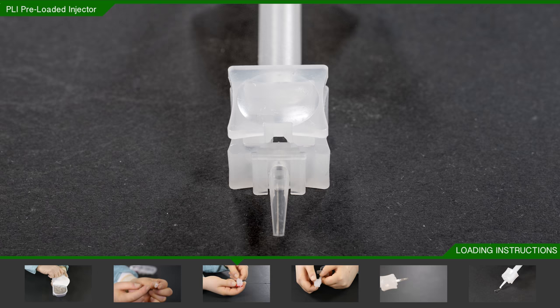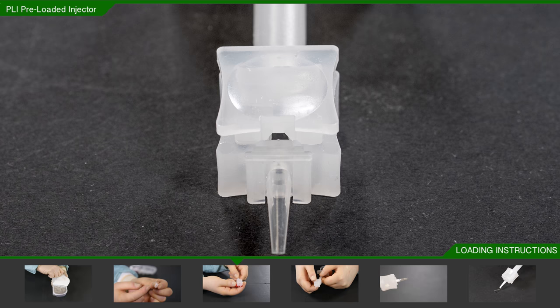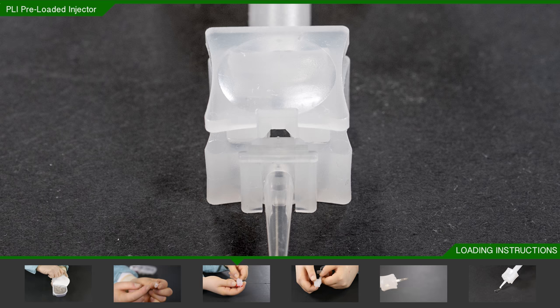The PLI is now ready to activate the loading mechanism. The most important issue is to make sure that the loading tab is pressed firmly, swiftly, and with even pressure. There are a number of ways to achieve this depending on the size and strength of your fingers.